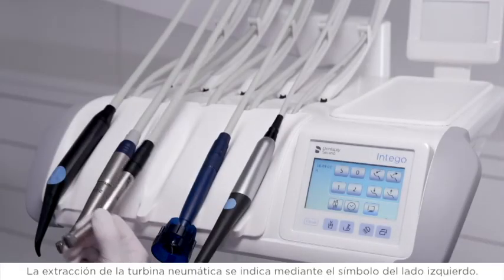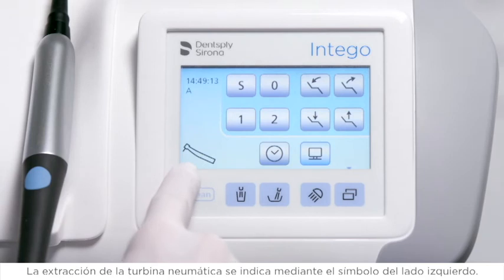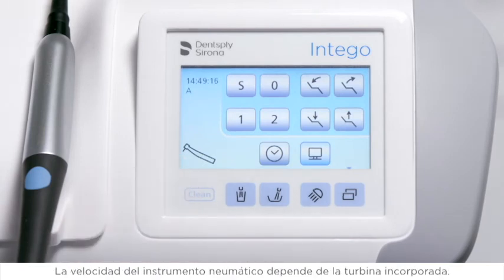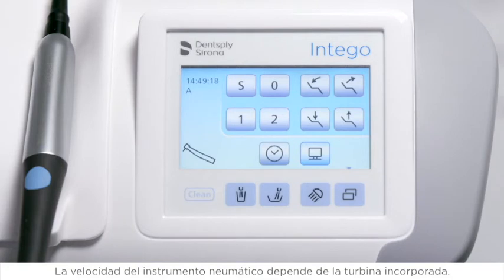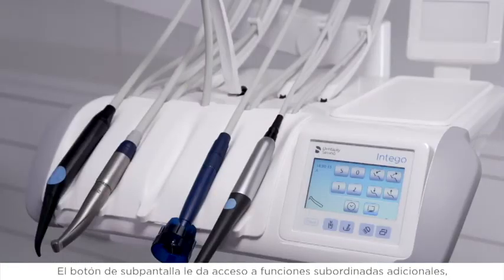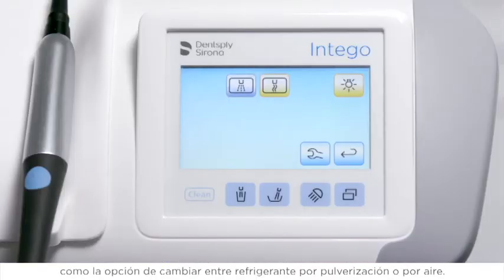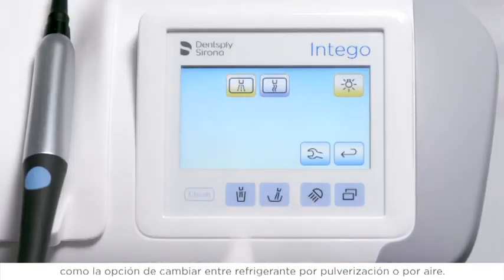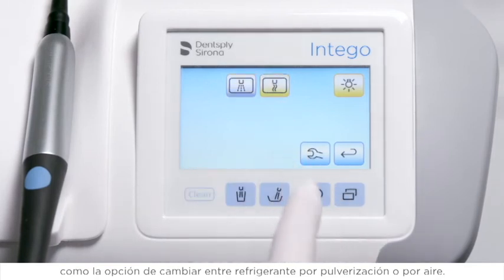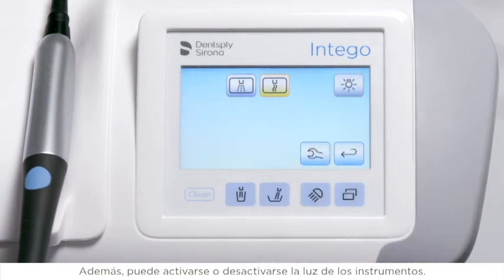A removed air-driven turbine is indicated by a symbol on the left side. The speed of your air-driven instrument depends on your equipped turbine handpiece. The sub-screen button gives you access to additional subordinate functions, such as the option to switch between spray or air coolant. Furthermore, the instrument's light can be either activated or deactivated.